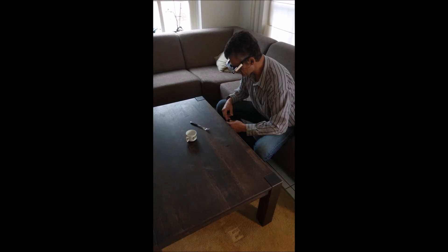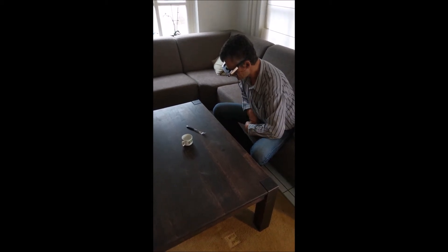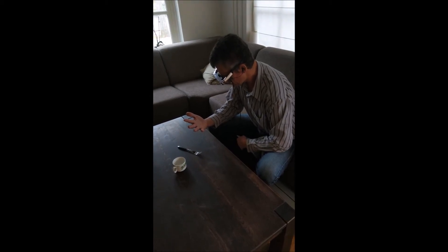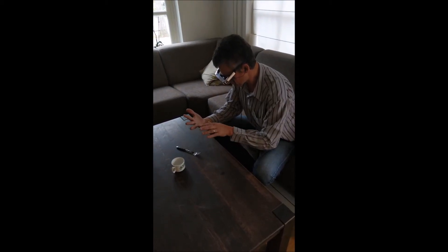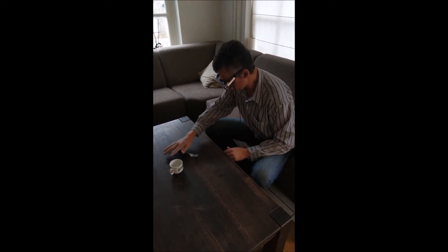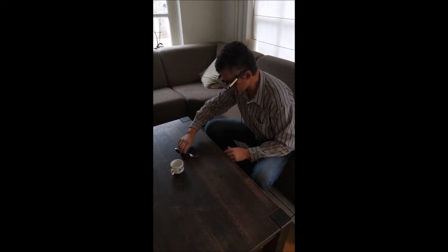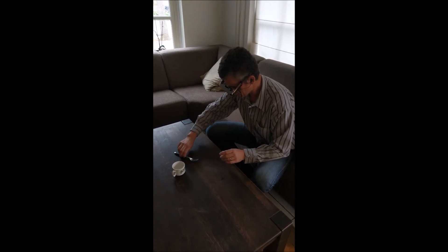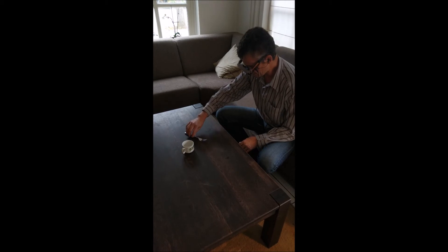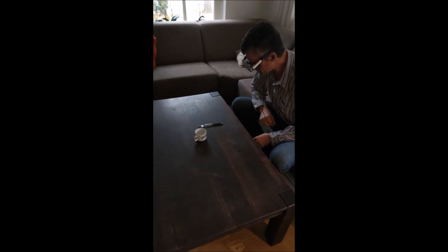It's going exactly up like that. Notice if I put my hand in front of it, it blocks it and makes that particular sound where each finger goes up like that. So now if I reach out I will find exactly that — and it was pointing up, which is interesting. I can hear that if I put it like this now.